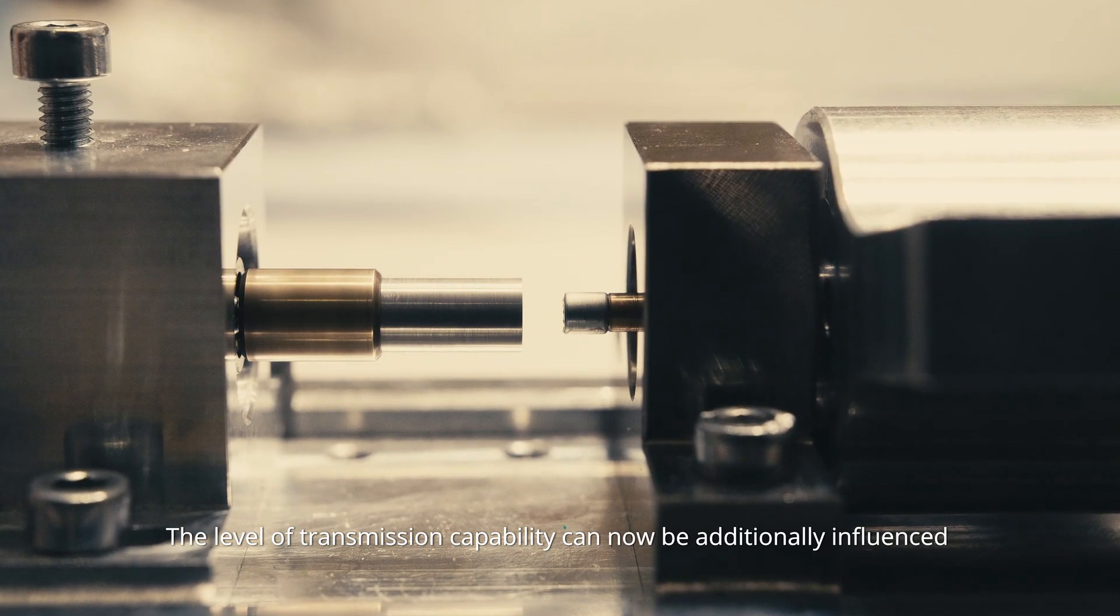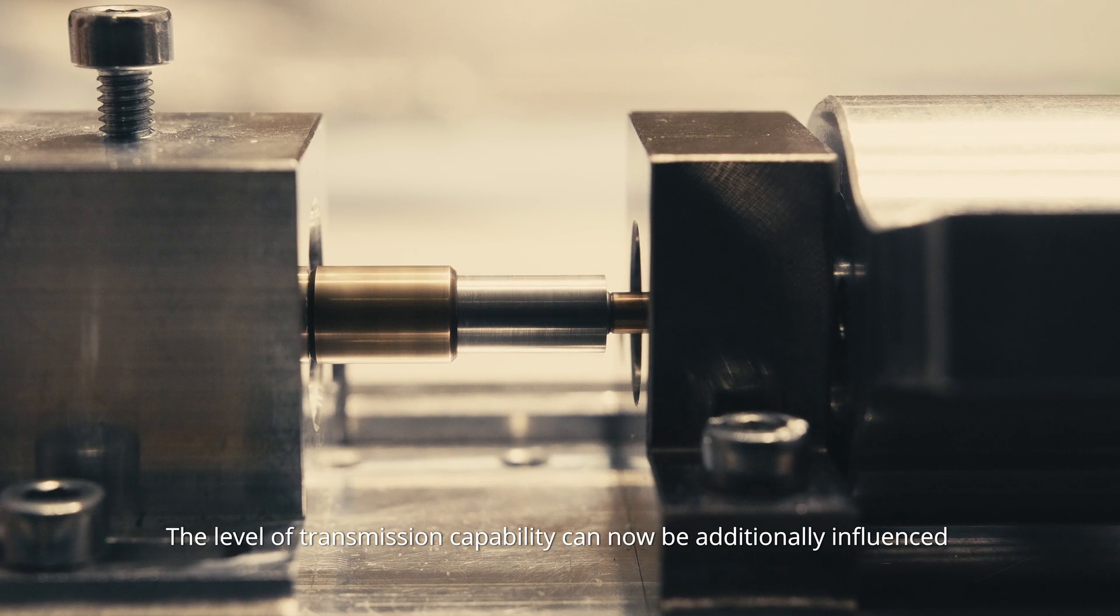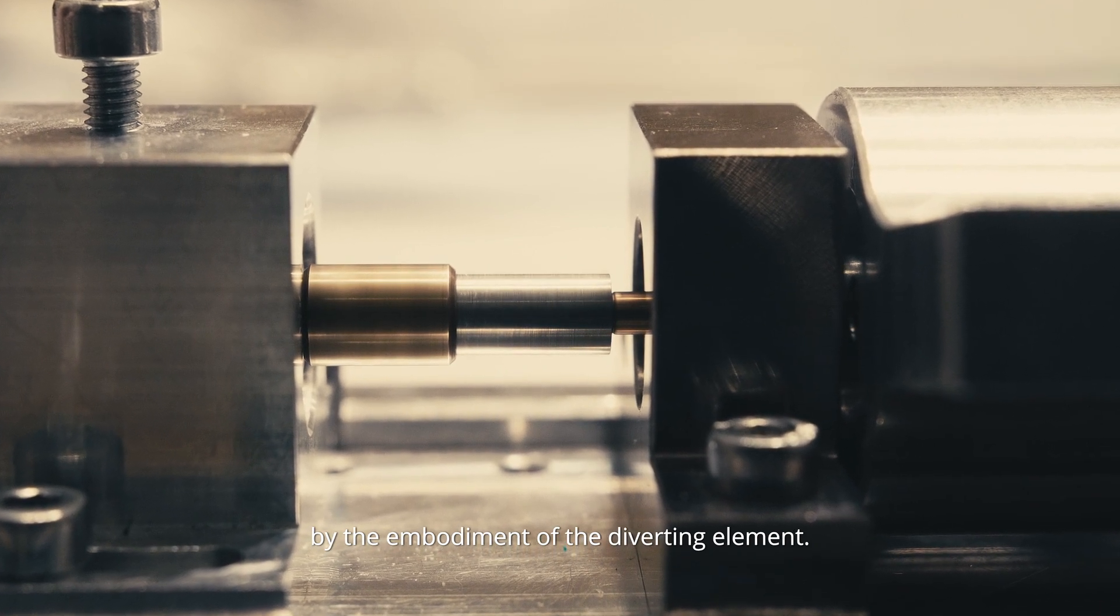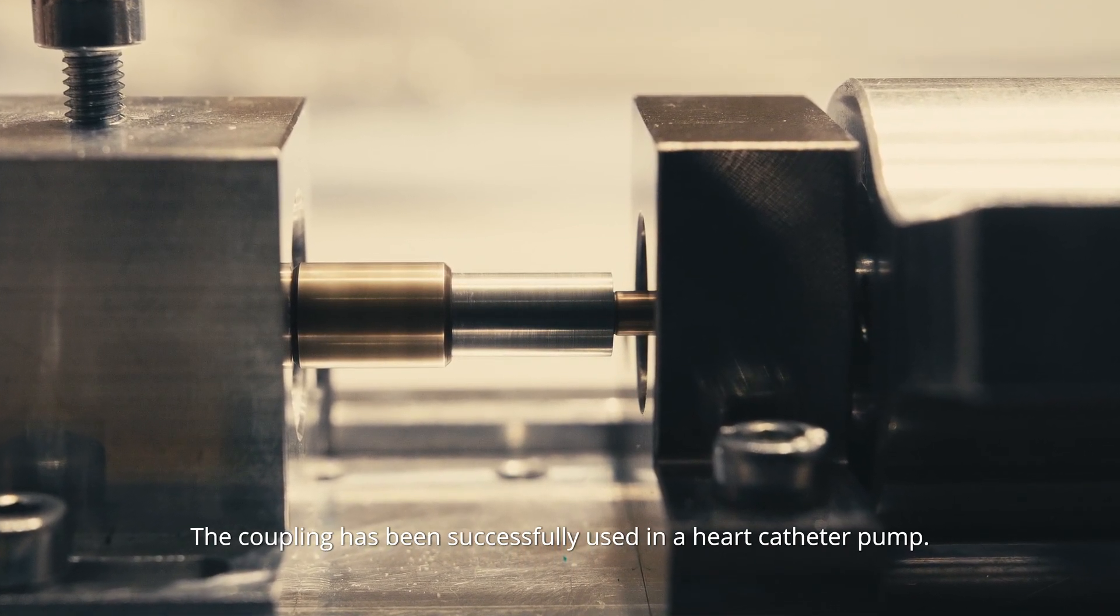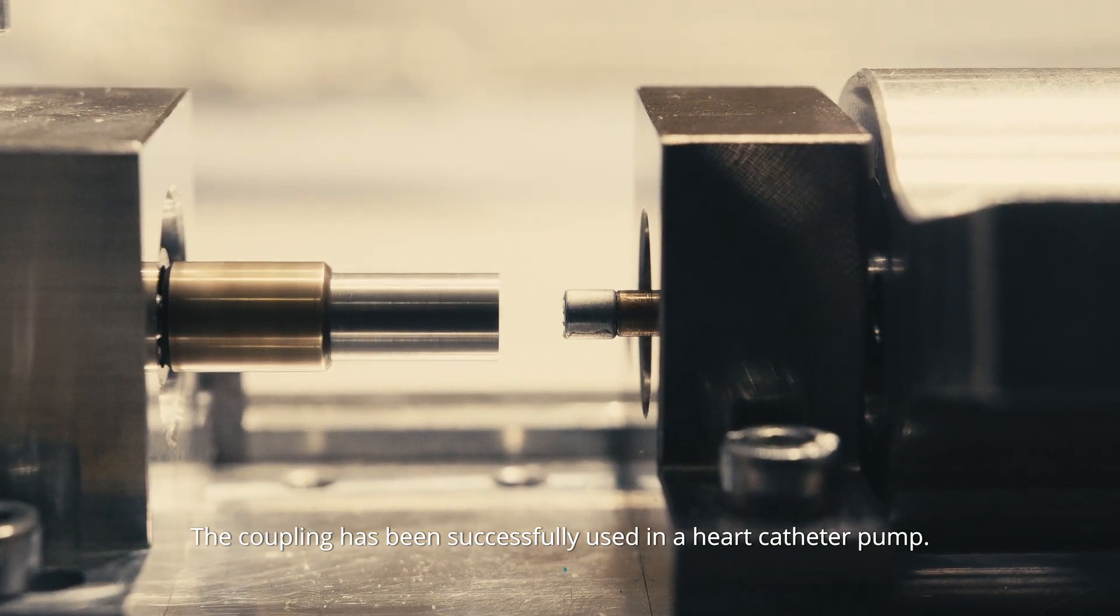The level of transmission capability can now be additionally influenced by the embodiment of the diverting element. The coupling has been successfully used in a heart catheter pump.